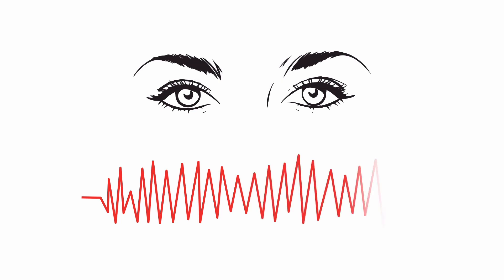So it's all well and good saying these devices are able to see the heart's rhythm and recognize when a patient's having a cardiac arrest. But I really want to drill down into how these devices are able to do this.